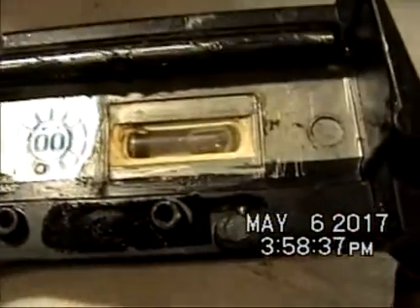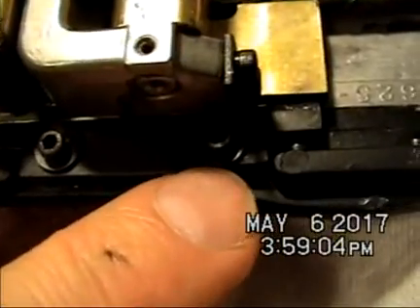I was able to lift this piece off after removing the PD lever. I also removed the PD indicator, which is bent. There's this little white rectangular thing which covered the back of the bubble, I think to make it more visible, which might have to be glued or taped in place to keep it from shifting. This crack in the bottom of the frame does not appear to be structural, so I'll probably leave that as is. The corresponding bracket on the other side also appears cracked, so I should probably replace those two brackets.